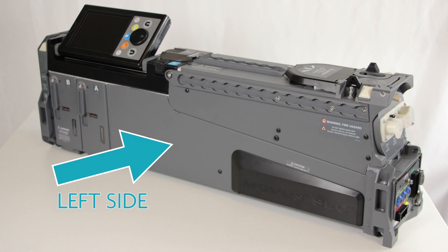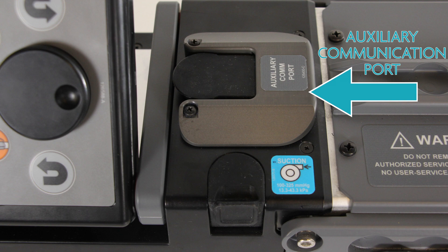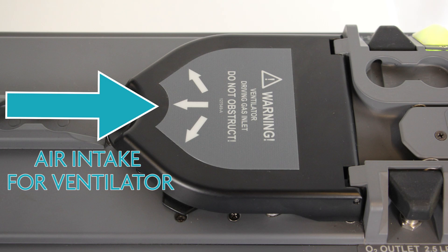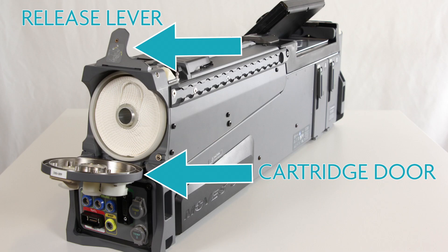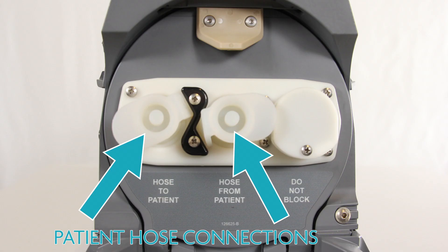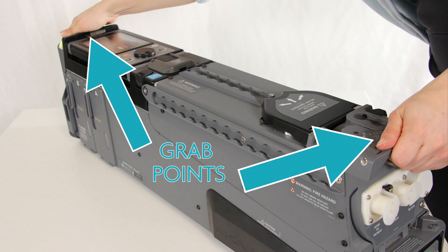Note the left side of the unit and the right side of the unit. The User Interface Screen and Navigation Keypad, the Auxiliary Communication Port, External Suction Inlet, Air Intake for the Ventilator Blower, External O2 Outlet and Inlet, Exhaust Ports, Ventilator Cartridge Door and Release Lever, the Cartridge Port with the Ventilator Cartridge, Patient Hose Connections, Inspiratory Relief Port, Rear and Front Clamp Mounts, Warning Lights, and the Front and Rear Grab Points.